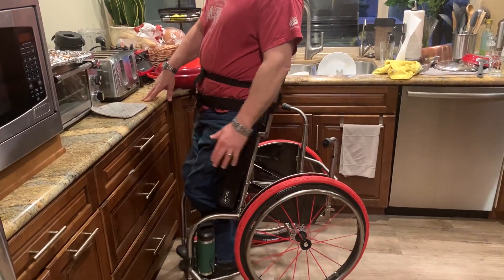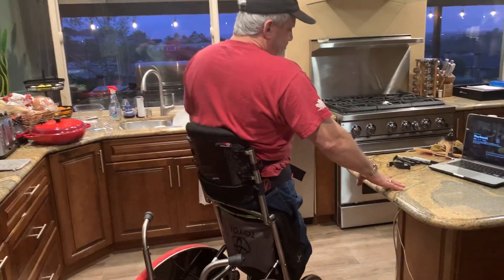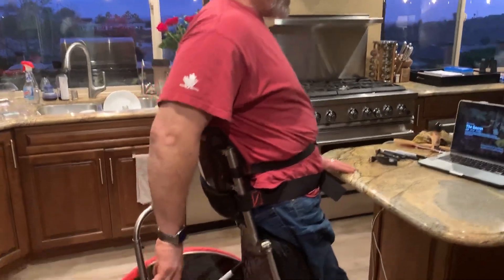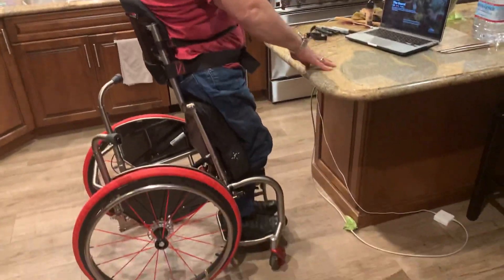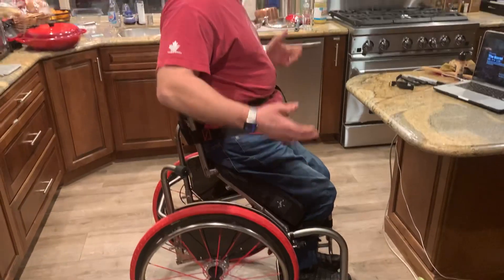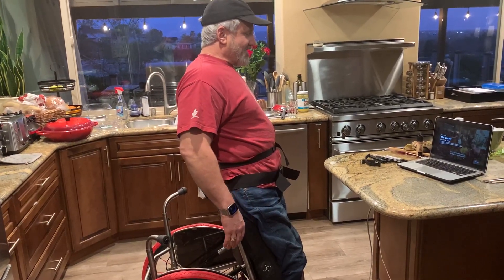The weight is driving down through the heels and it's way behind the casters. I gave this chair a little bit longer wheelbase than my other chair, to make sure that any kind of moving around wasn't going to tip the whole chair forward. Right now things are still catching — I believe it's the flat spot here catching on the flat spot there. I still have to do some work on that. After a nice bit of standing — and standing straighter than the prototype — that was the object of spending all this money.